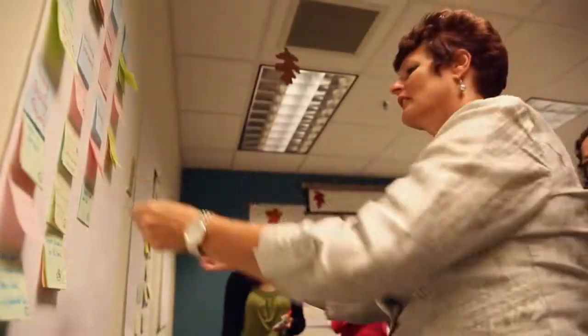We were just a traditional microbiology lab. We turned things around as a traditional microbiology lab does. It was sort of like, that's as long as it takes. bioMérieux took a look at our entire operation.